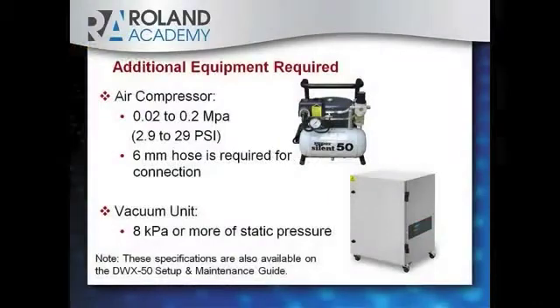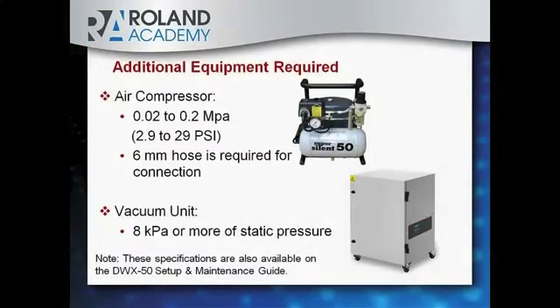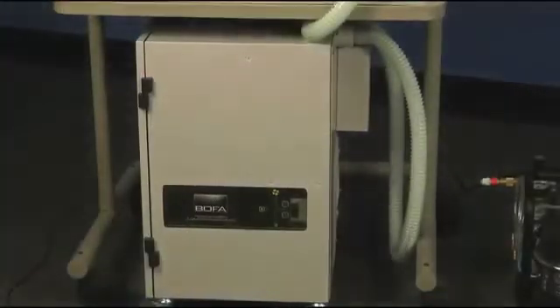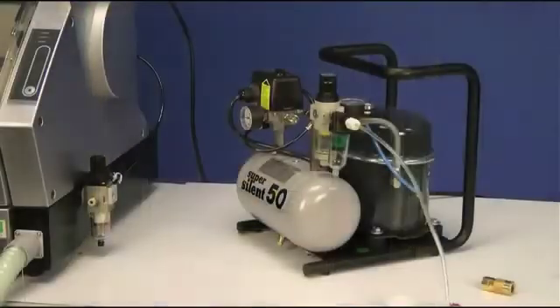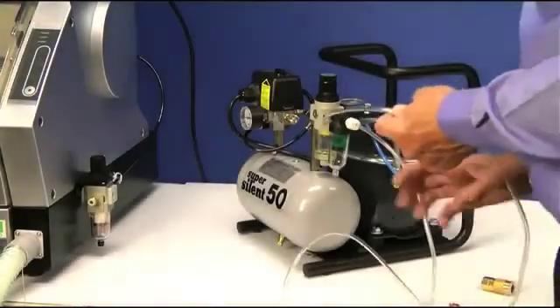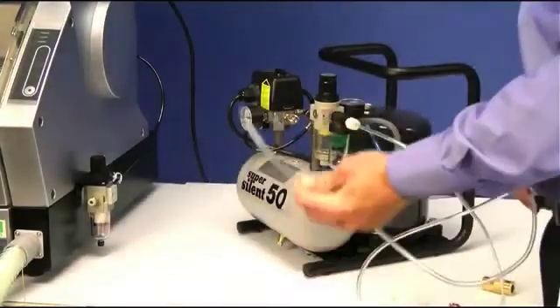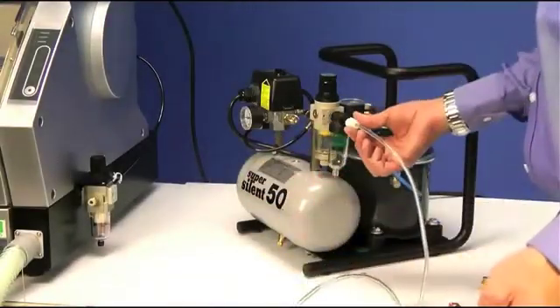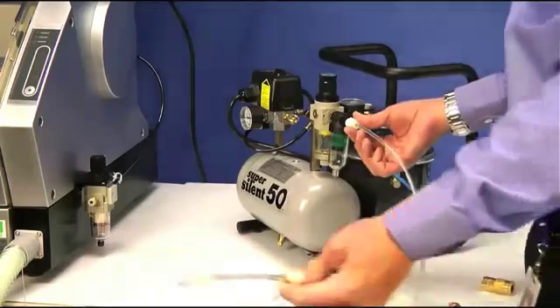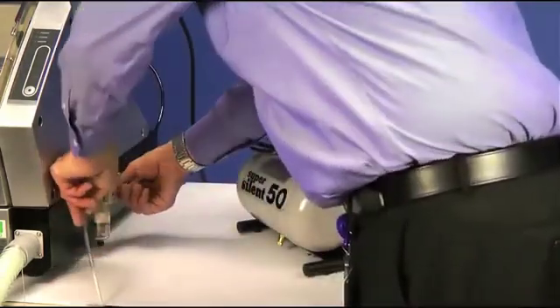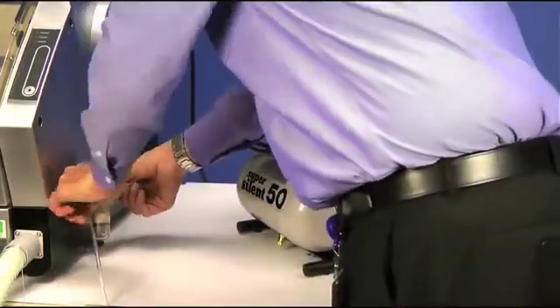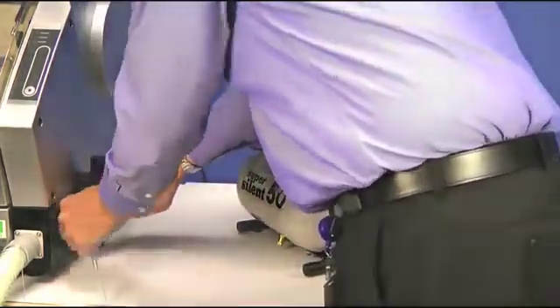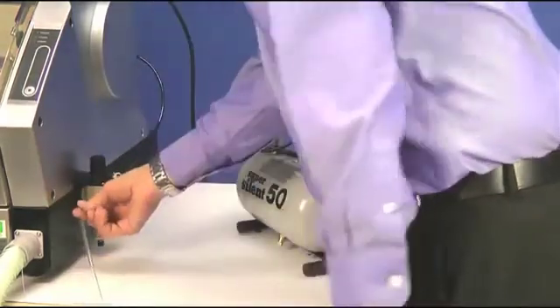Next you will need a vacuum system and an air compression system that meet the specifications listed on the spec sheet in your documentation for the machine. Once you have your air compression system, take your polyurethane tubing. It needs to be 6 millimeters. Press it in flush into the regulator's quick connect valve, making sure there is no air leaks.